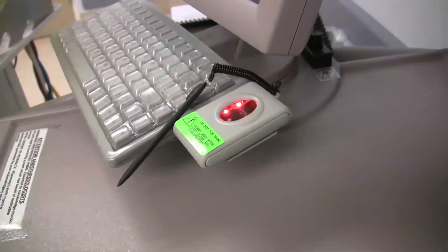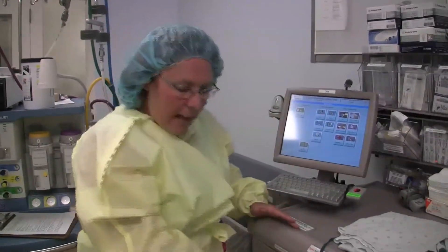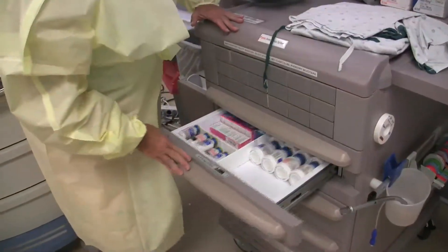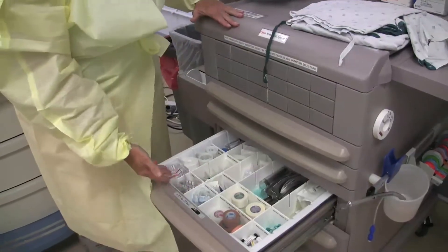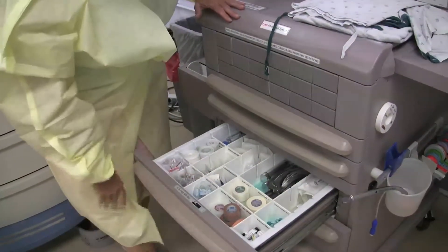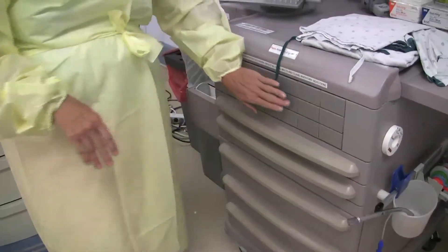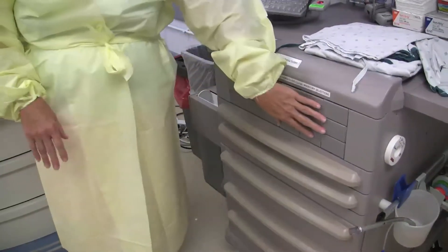At that point, when it sees that yes, I am a person that can get into this machine, that click just unlocked some of the drawers. The drawers it unlocked include a few medication drawers and some supplies, like tapes and syringes, things like that.